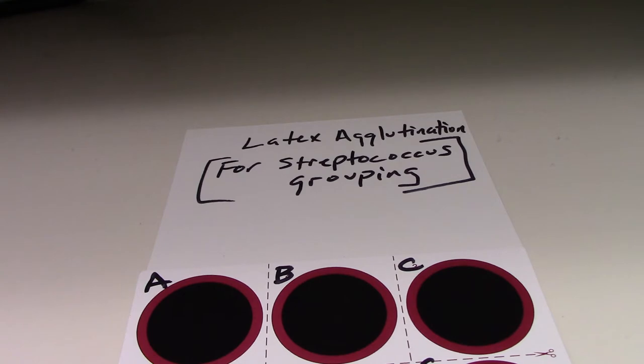Group A streptococcus pyogenes, group B streptococcus agalactiae, and strep C streptococcus constellatus.